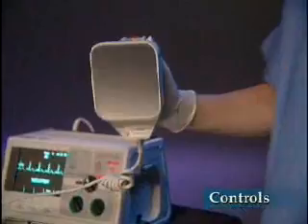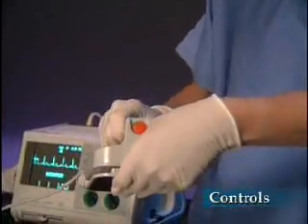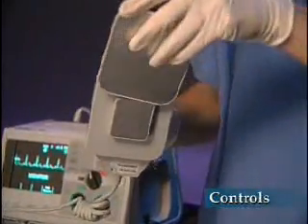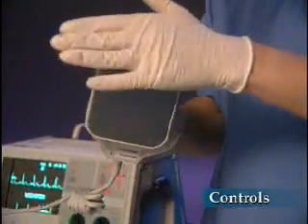External paddles are stored on either side of the unit and can be tested in this position. They may also be used as handles to grab or carry the unit. The paddles connect to the universal cable by inserting the end of the cable into the paddle labeled apex. The cable is removed by sliding the latch and removing the end from the paddles. Pediatric paddles are located directly under the adult electrode. Press the latch and slide the adult electrode off. When replacing, it is important that the adult electrode is locked correctly into position.